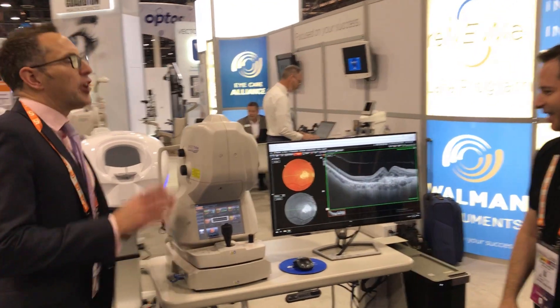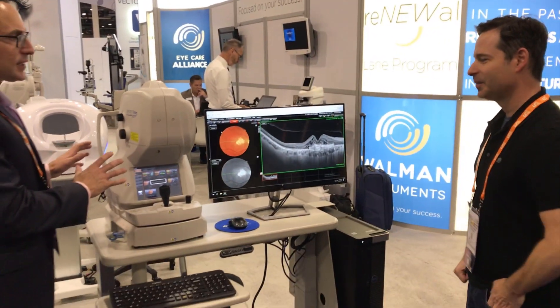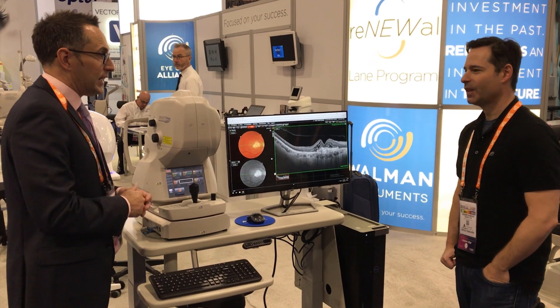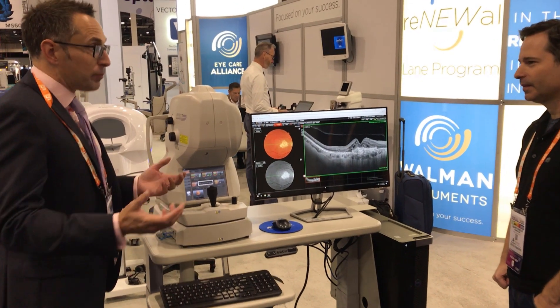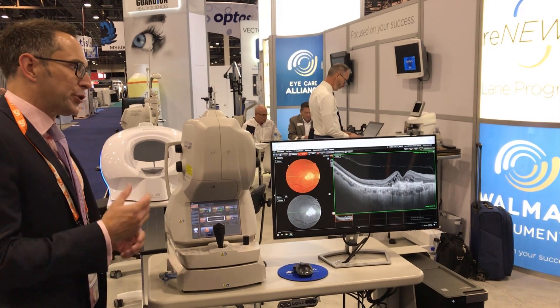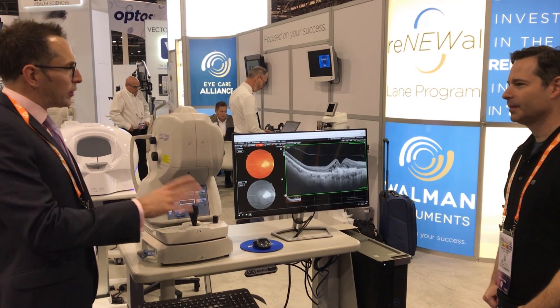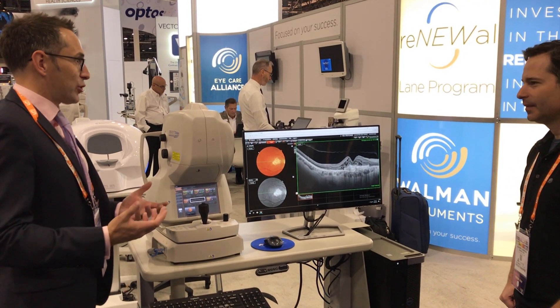The Triton is a completely different beast. This is a 1050 nanometer swept source OCT. We originated way back in the day with time domain OCTs, and every posterior OCT here today is a spectral domain OCT. But this is the first commercially available swept source OCT — the next generation of OCTs. Not to put the Maestro down — spectral domain is fine, it does a great job, and from a price point of view it's extremely attractive.